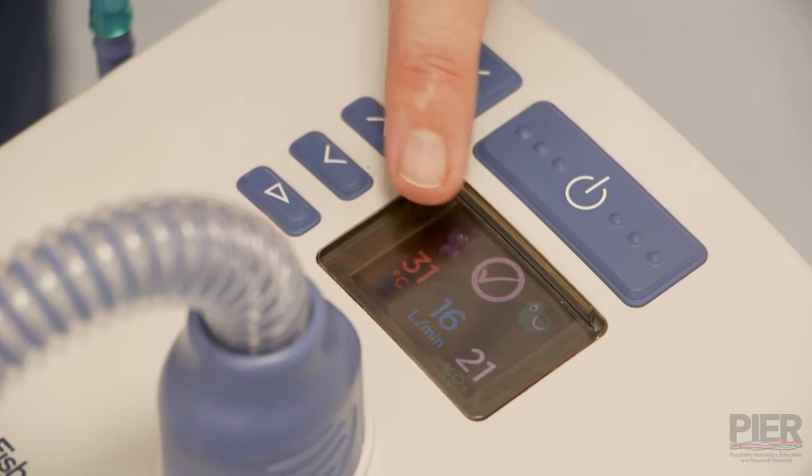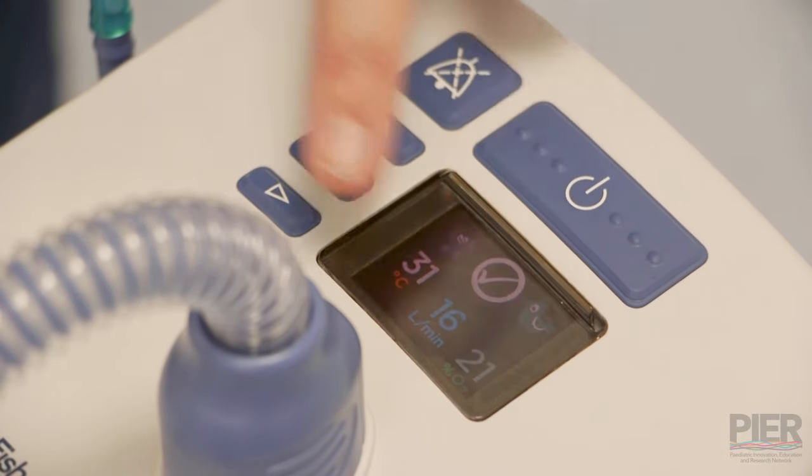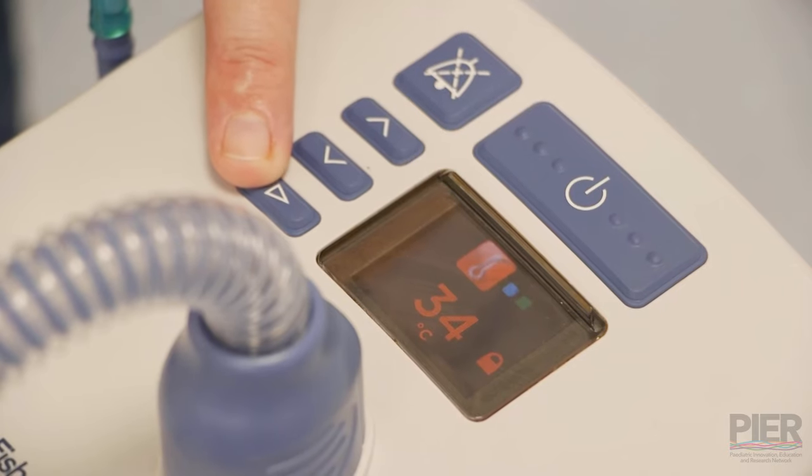You can see on the screen you've got the temperature, the flow and the oxygen. But if you press the play button, it will scroll through these each individually.